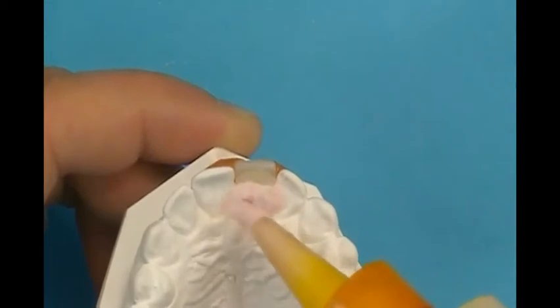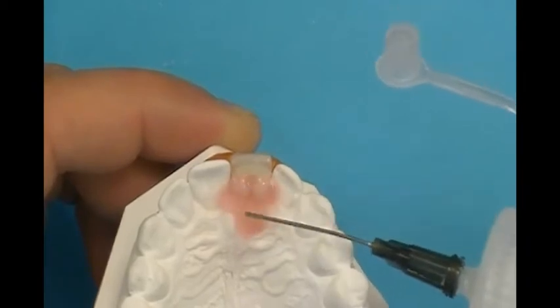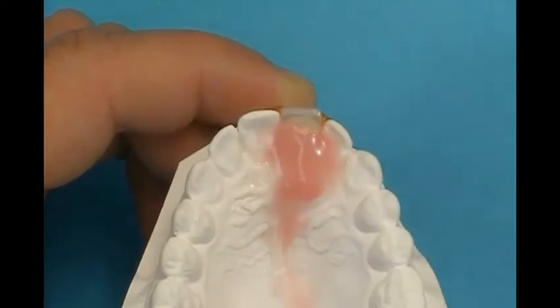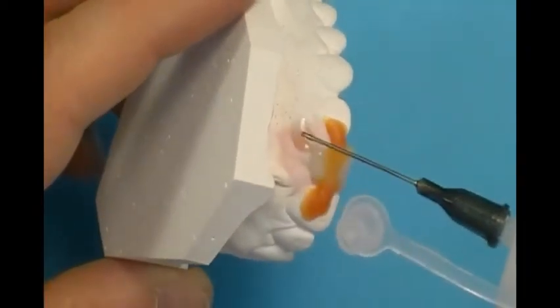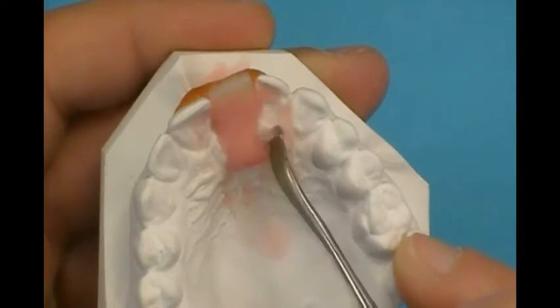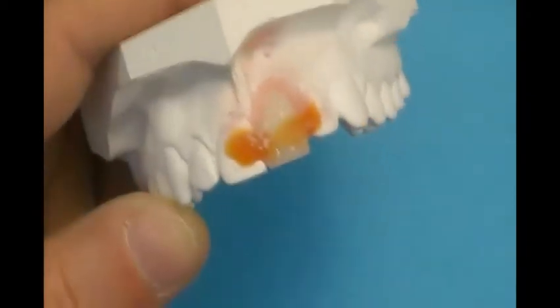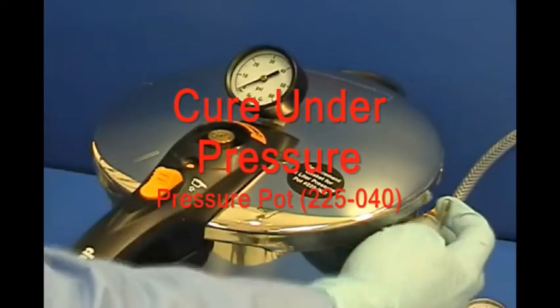Add layers of powder and liquid resin to cover the cervical crown of the pontic. Remove excess acrylic resin from the model; resin should only be within the pontic area and extend slightly onto the palatolingual tissue. Place the model and acrylic resin into a humid pressure pot for 15 minutes. Pressure should be adjusted to approximately 20 psi.